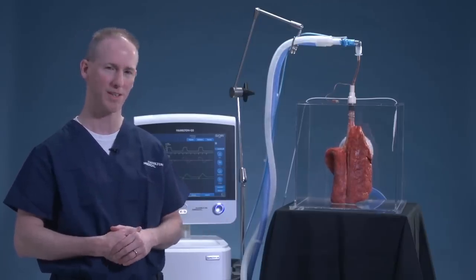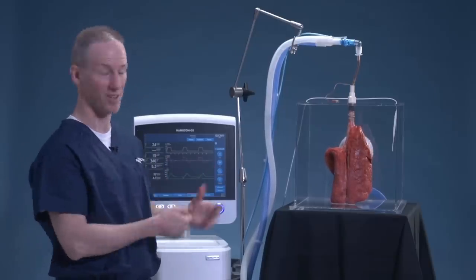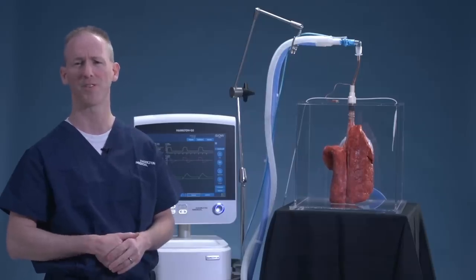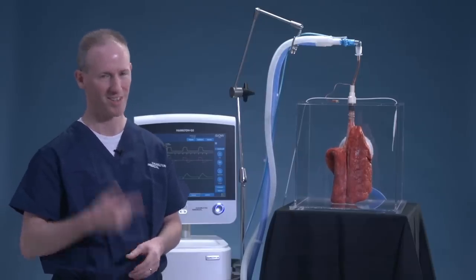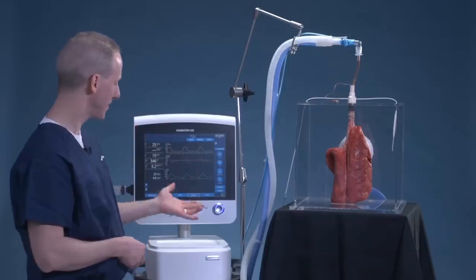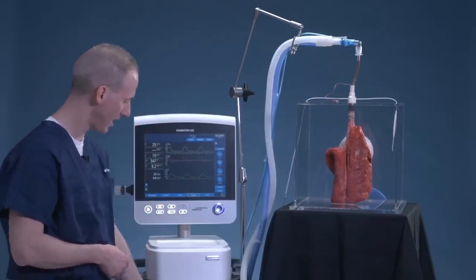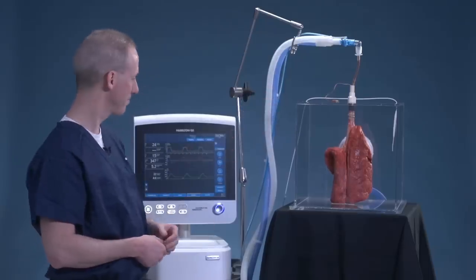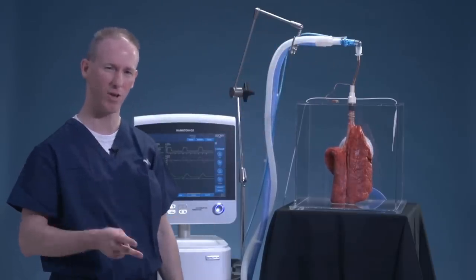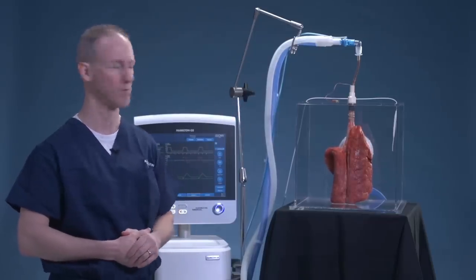How do we separate these two? How do we delineate between airway pressure — the pressure inside the lungs — and the pressure outside? With a G5 ventilator with esophageal pressure monitoring, it's a pretty easy and simple way to do it. We have the G5 ventilator, an esophageal line going to our esophageal catheter, and a proximal flow sensor capturing the most accurate pressures, flows, and volumes right at the interface of the ET tube.